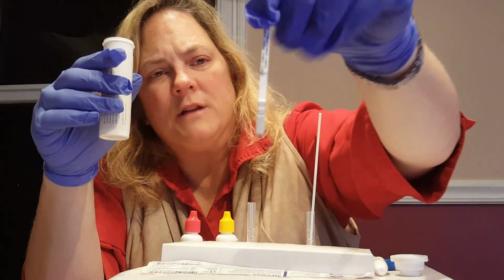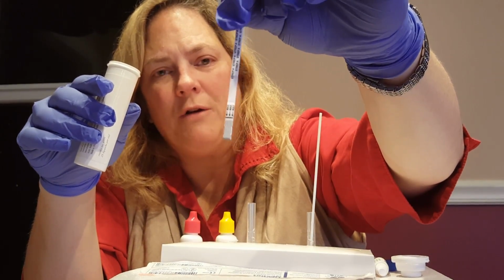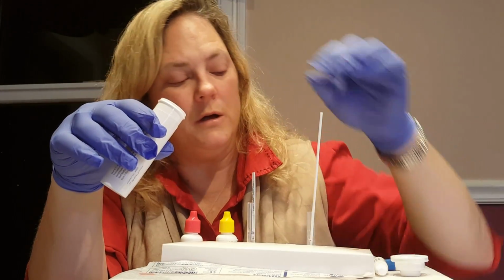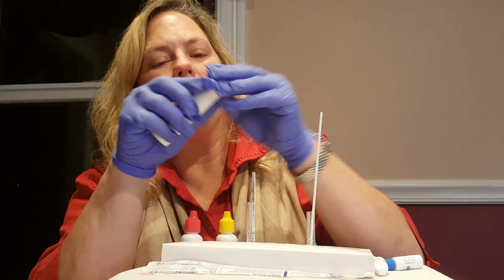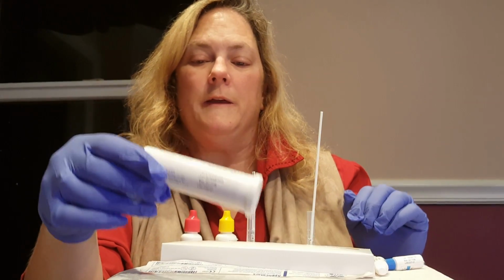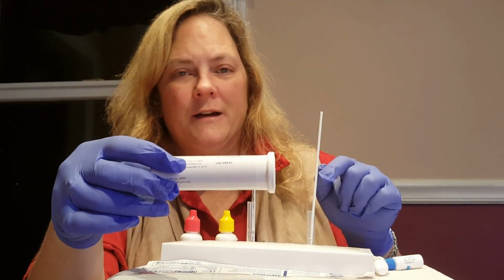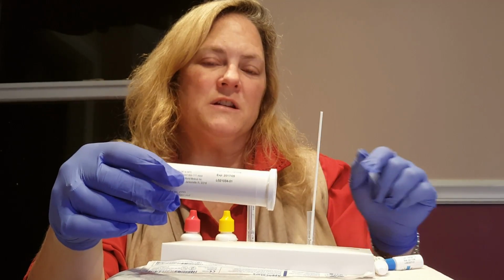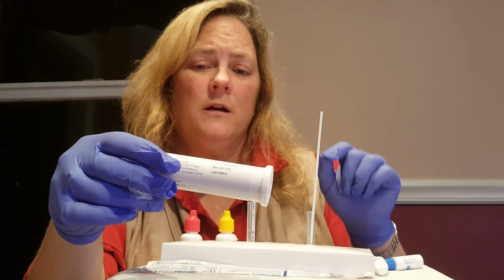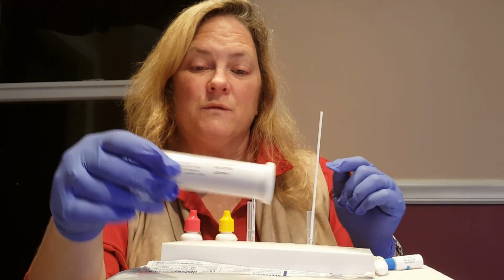So there are arrows on the test strip, and that's the way it indicates to you how you put it into the tube. So you take it out and you put it straight into the tube. And then you set your timer for 5 minutes. And this works similar to some other CLIA-waived tests, in that in the test area, if there is no line, then the result is negative. If there is a line in the test area, then the test is positive for whatever you're testing for. In this case, it would be strep.